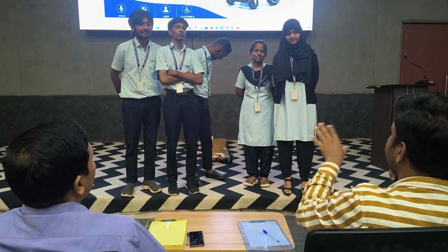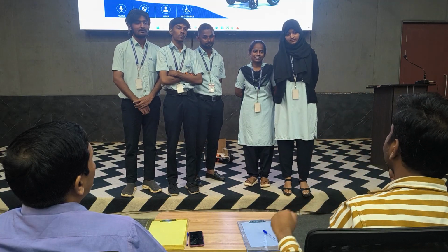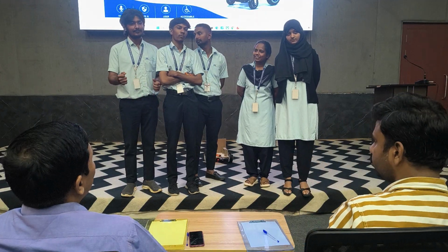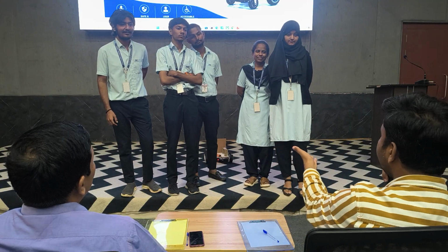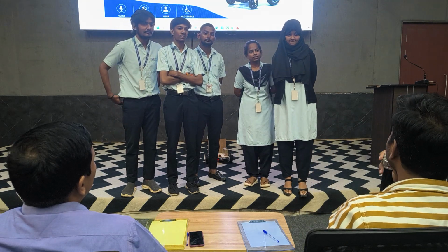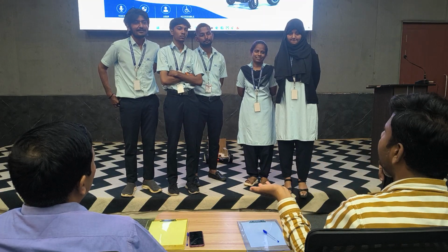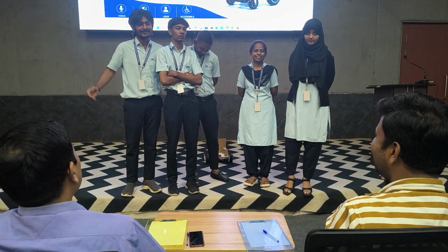Has any one of you even tried to sit on such a chair and experience it yourself? I sat on the voice system. Okay, so how was your experience? To be very honest, good. Good. Then how can you make it better with your product? Anyone else? Where did you find that chair? In Mumbai, sir. Yes, you find it here also. You just go to any of those shops. So when I went there, I saw it.